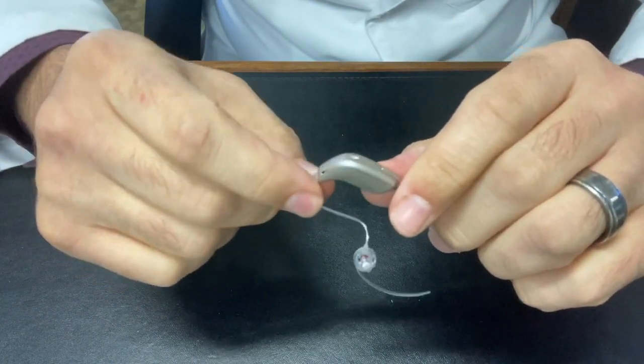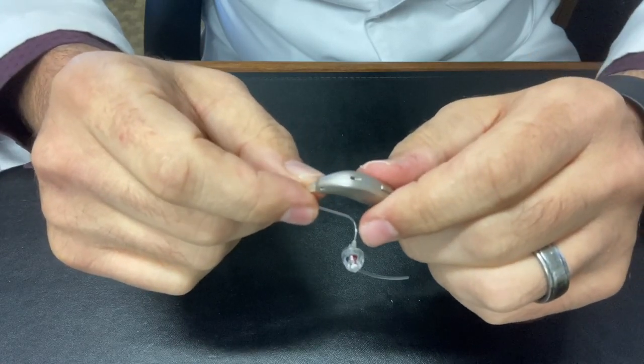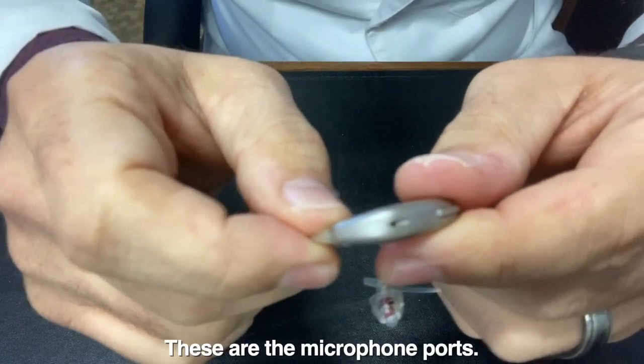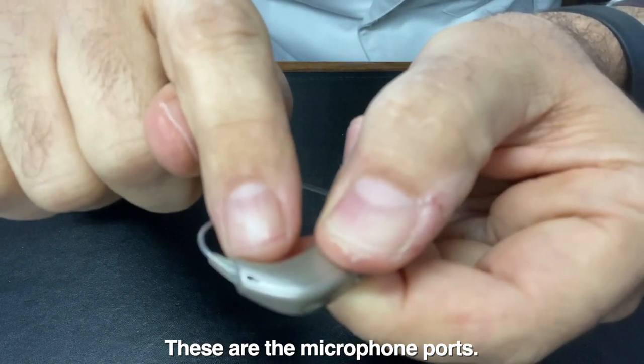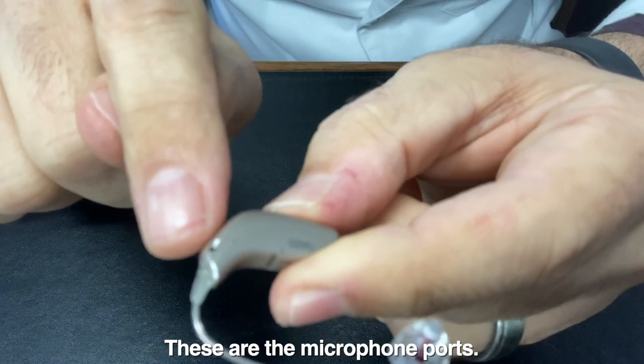So the first thing that I like to do is just brush the microphone ports. The microphone ports are these little holes. You can see one here, one here, and one on the other side here.